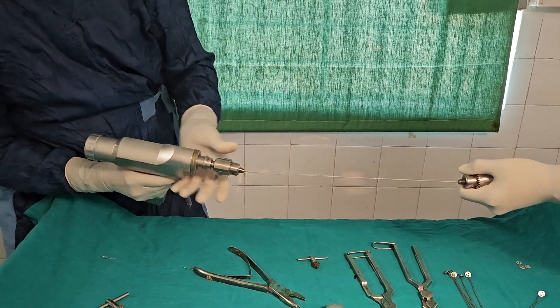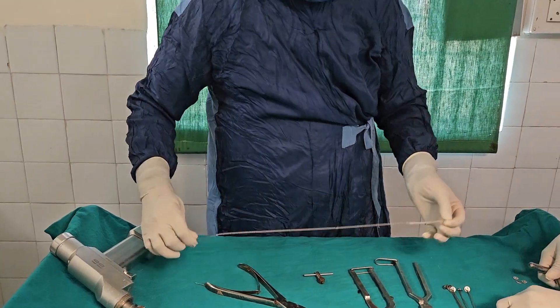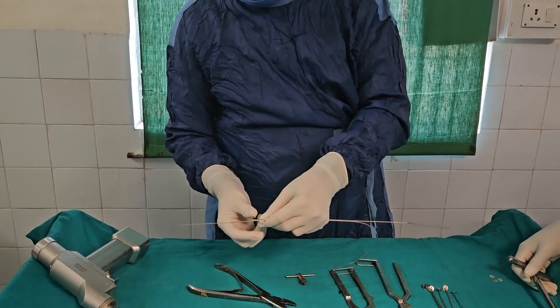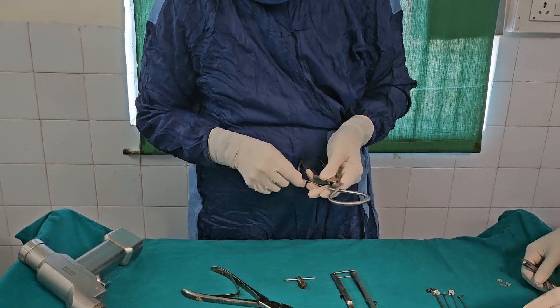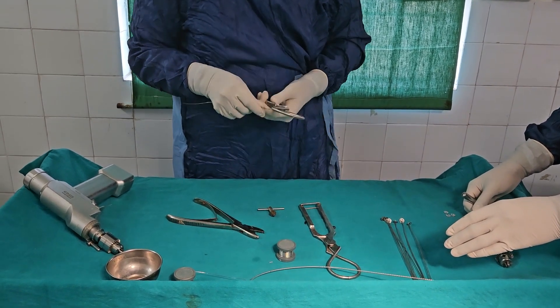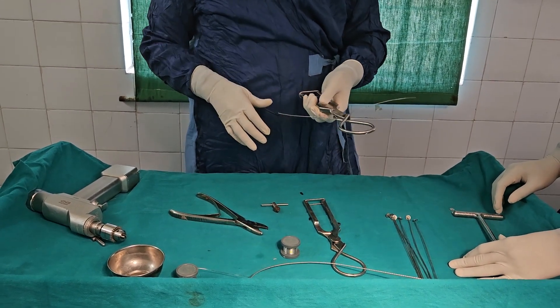A uniform cable has been prepared now. You can see that this cable length is more when compared to the earlier cable. The length of the cable has been increased by almost 6 inches. It is easier to pass also, because there is a single wire which initially passes and then the remaining portion follows it. The cable length has been increased — that is the advantage of this cable.